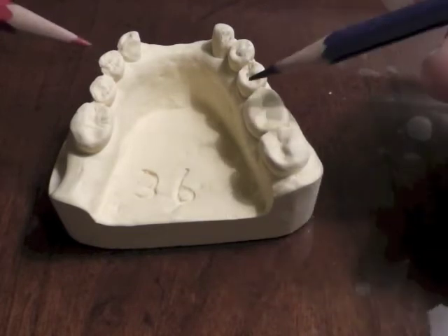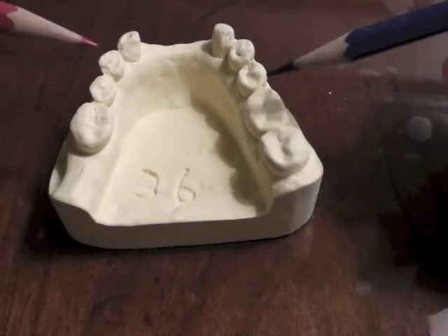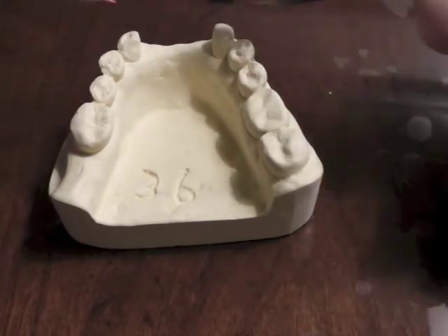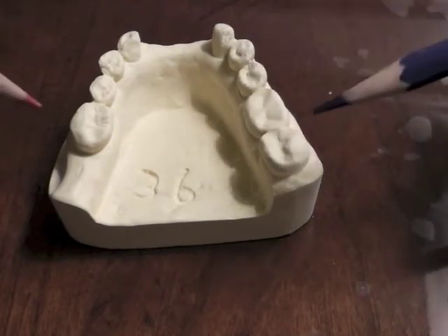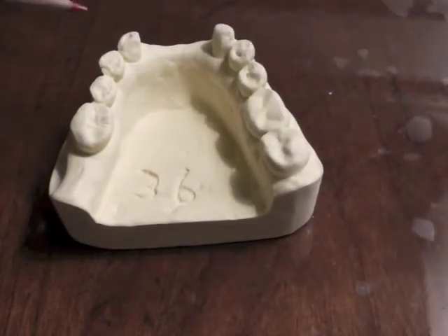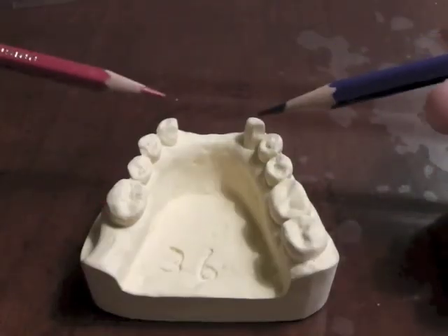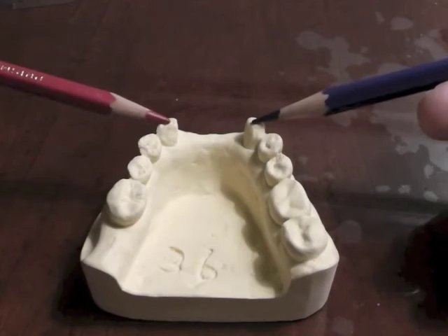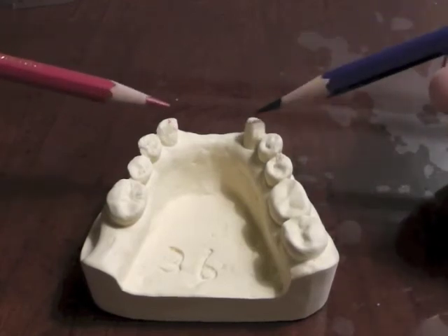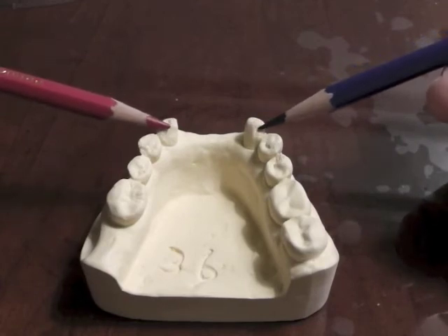So now we have a plan. We know what we're going to look for when we get ready to actually survey our cast — thinking of all the rules of the Kennedy Class IV and what we're trying to do to achieve stability and retention on this particular RPD. The other rule states that we have to have a rest next to or near our edentulous area. Therefore, on this canine, we would have to have an additional rest on our canines.